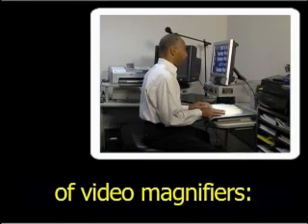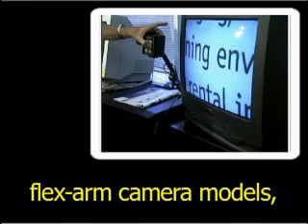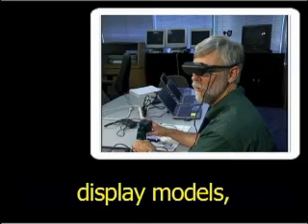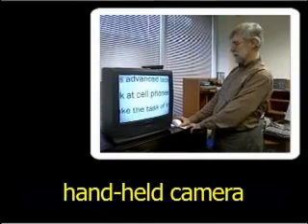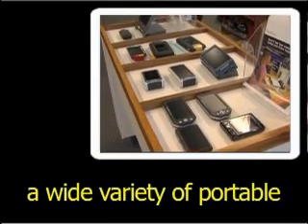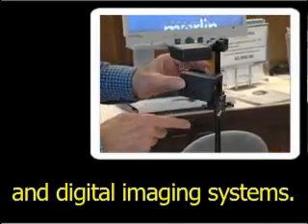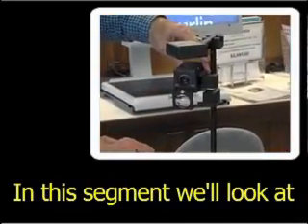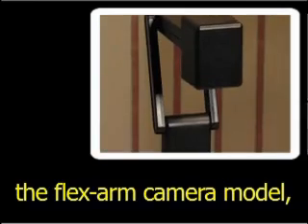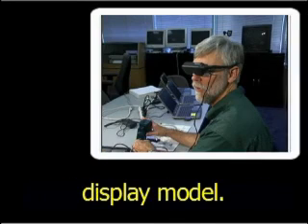There are six basic types of video magnifiers: desktop models, flex arm camera models, head mounted display models, handheld camera to TV models, a wide variety of portable electronic pocket models, and digital imaging systems. In this segment, we'll look at the desktop model, flex arm camera model, and the head mounted display model.